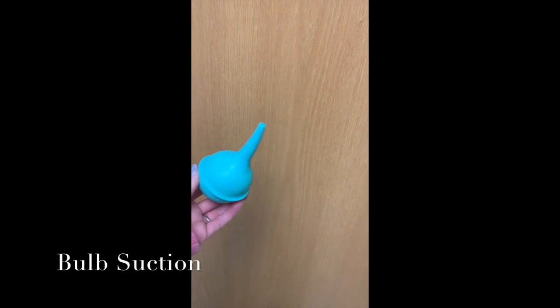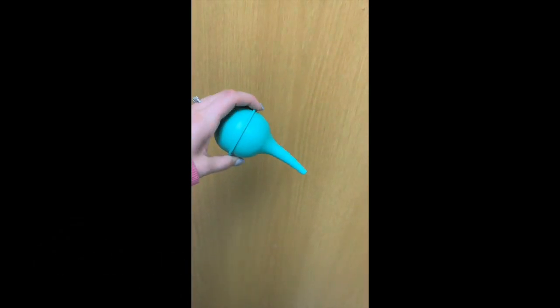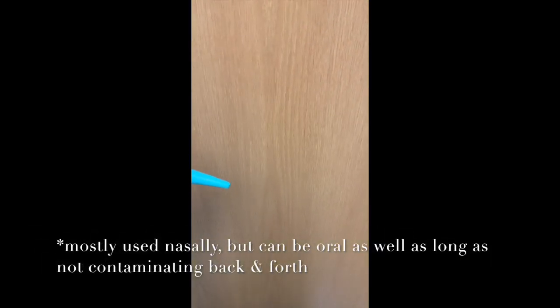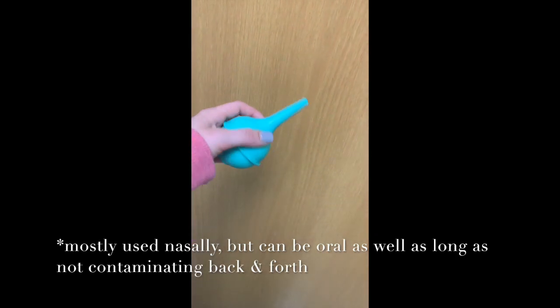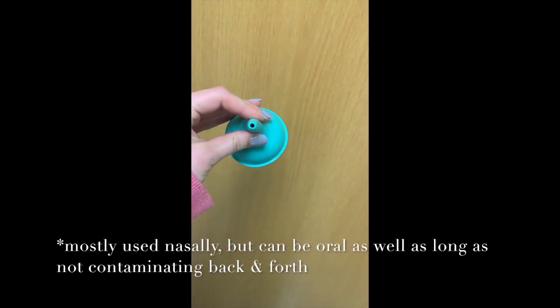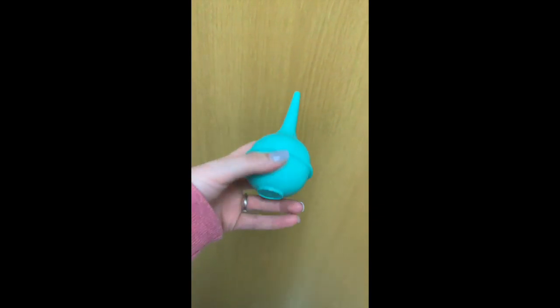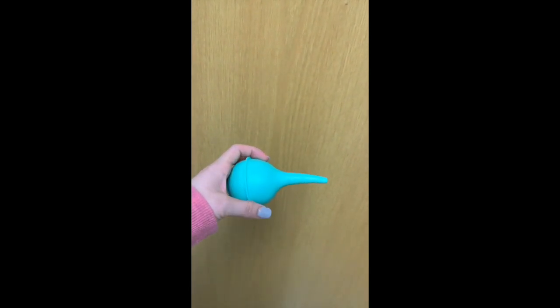Another type of suction that we use in the pediatric world is called bulb suction, and this is kind of similar to a turkey baster. It's especially great for babies. We use it for oral suction and nasal suction. As you can see, it's very soft and pliable. It does not have to be attached to the actual suction machine because it works mechanically.